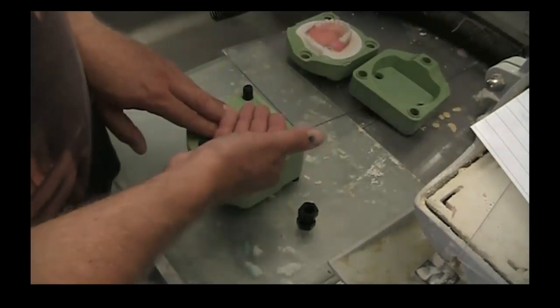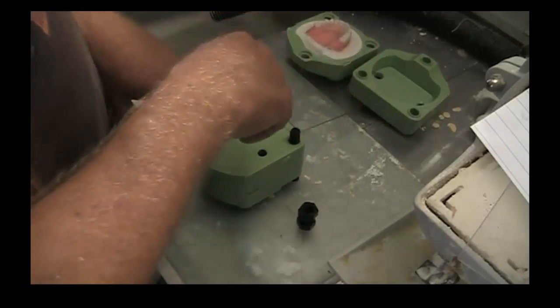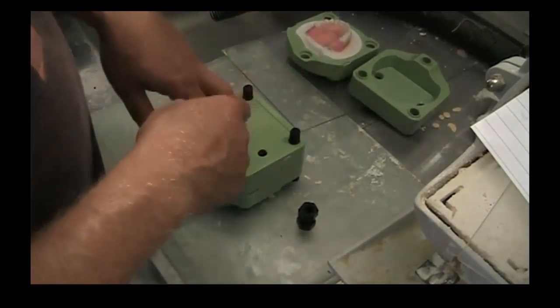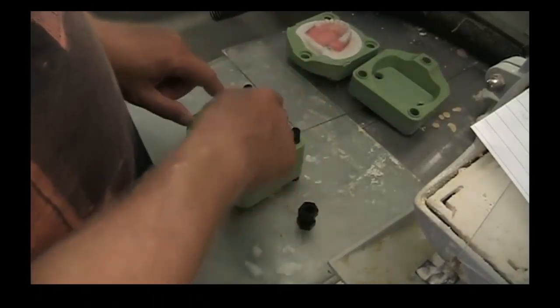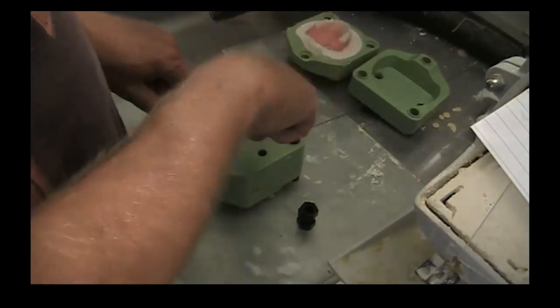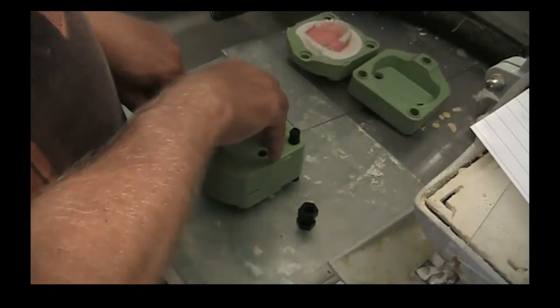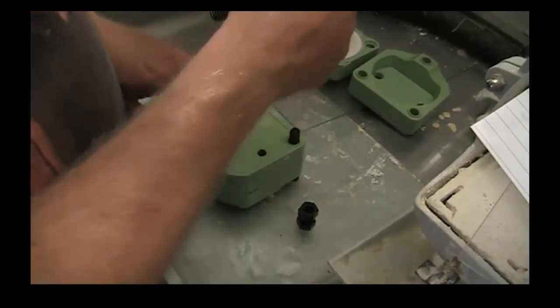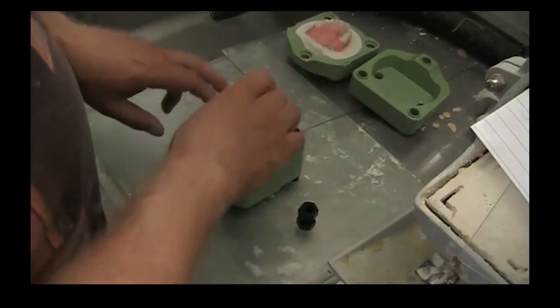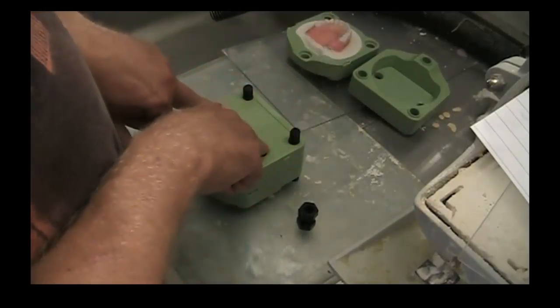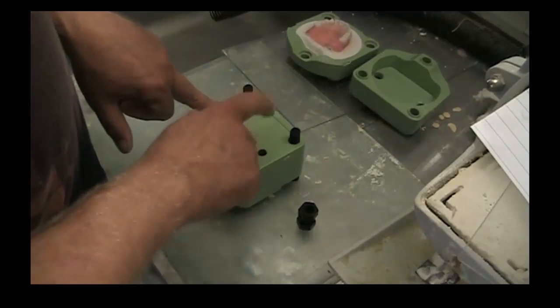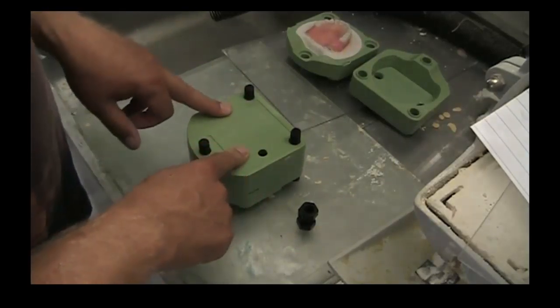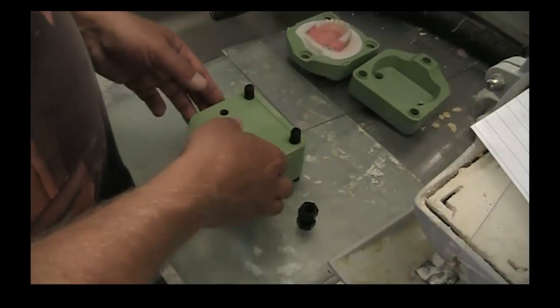The older presses don't allow a lot of room. I have a Mistra hydraulic which uses oil, it has a pumping handle and a center plate, and I can screw it down to get it to snug down before I pump up the pressure. The space is adequate for me to get it on the top of the flask. With that being said, there are some things that I do with my flask to make it a little bit more user-friendly.